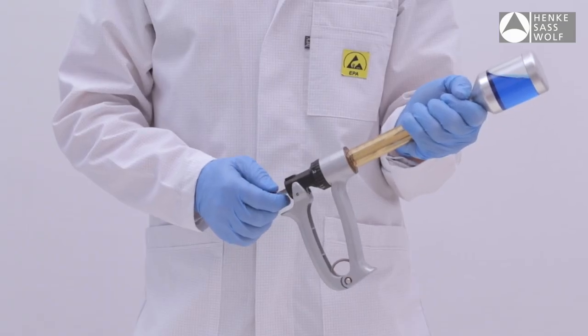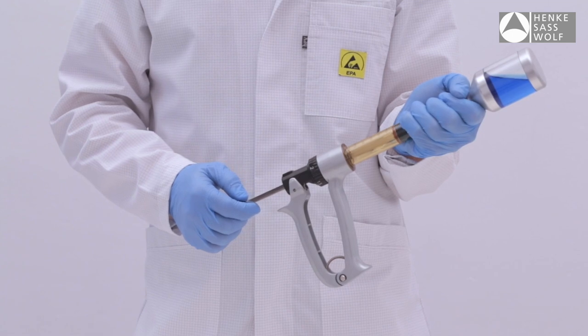Then draw liquid into the barrel while holding the bottle inverted until the syringe is completely filled.